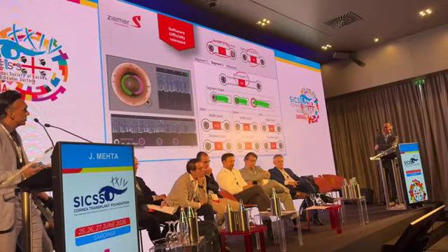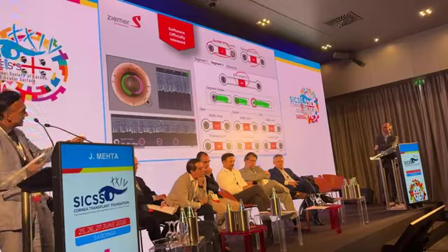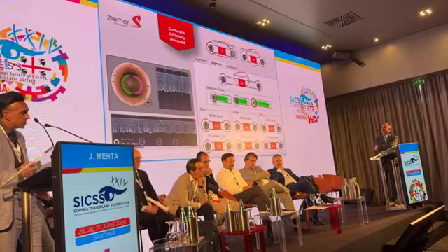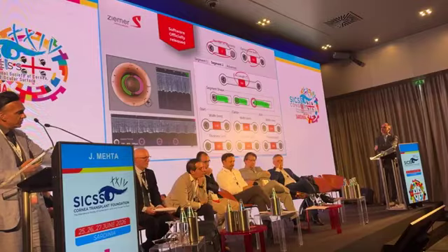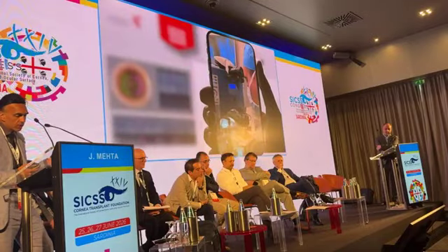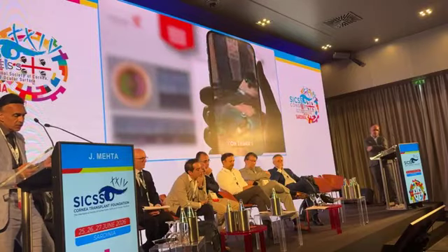And you can then look at shapes: symmetrical, tapered, and you can have double tapered. So this allows you to customize to the patient's corneal tomography that you've taken from the tangential map beforehand. You can feed this to the eye bank, so we have a form you just fill in, tell the eye bank what you want cut, and then they'll cut the tissue for you. And likewise, you can set the width of the segment and the thickness that you want over here as well. This just shows you a real-time optimization where you're doing the cutting.